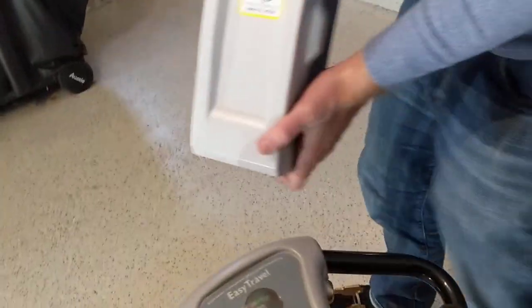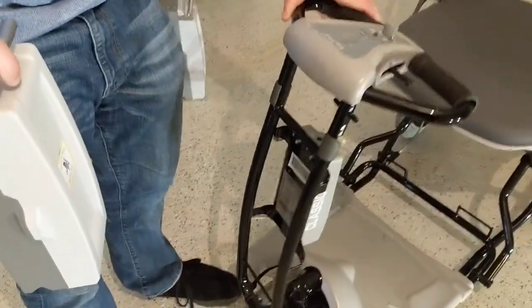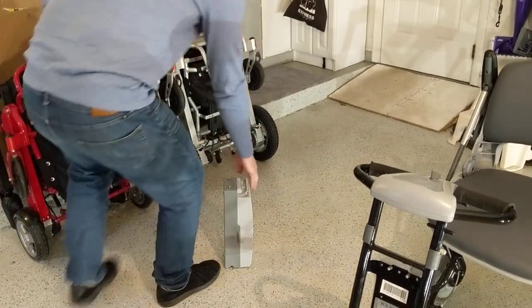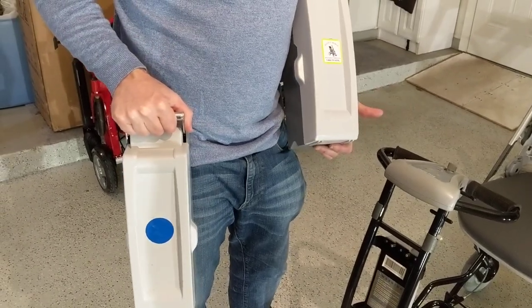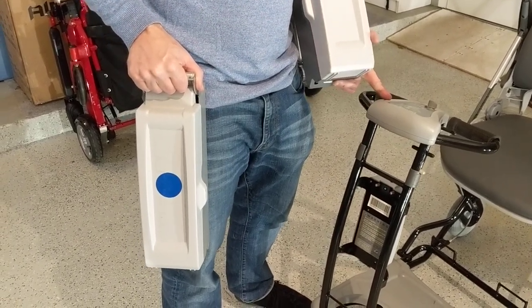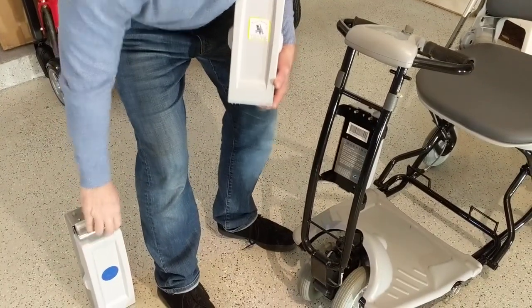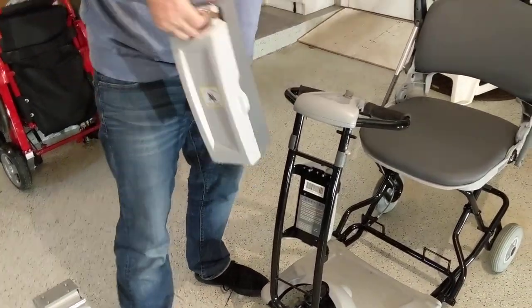Let's take a look at this battery. I'm using the front tiller to steer, so I don't want to add a lot of weight. The 9-pound lithium battery is one I can take on an airplane, versus a 19-pound lead-acid battery. Some of the complaints we've received about this device have been because of the lead battery — it's heavy. If you have some physical impediment causing you to look at mobility scooters, my opinion is spend the extra money, get the lithium battery — it's going to make your life a lot easier.